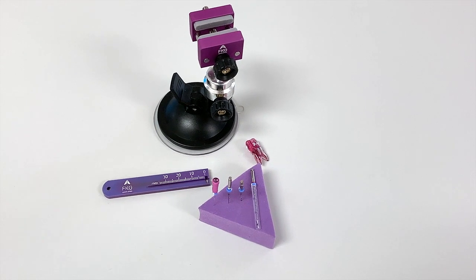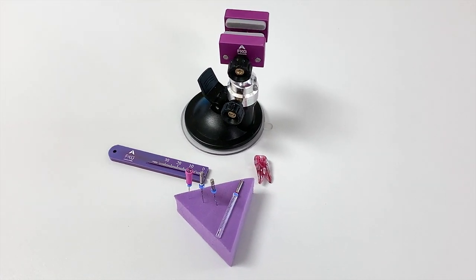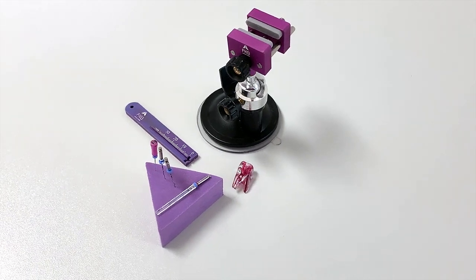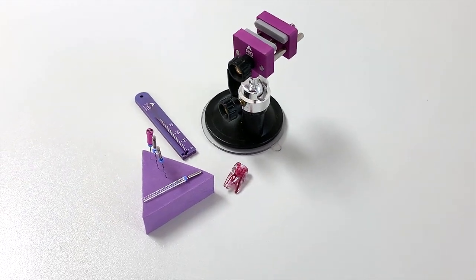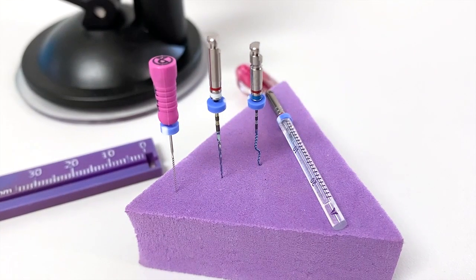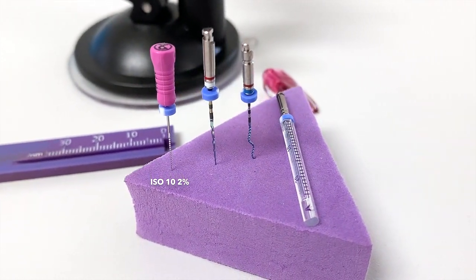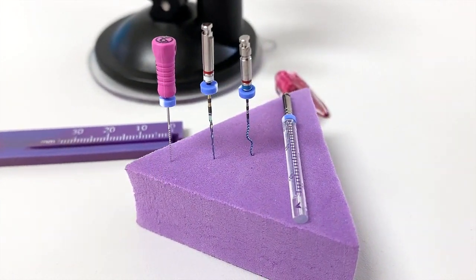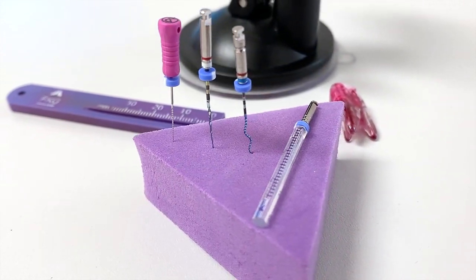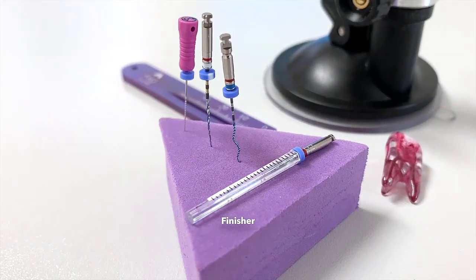Hello and welcome to the instruction manual video about the XP Endo Rise sequence and the finisher. The XP Endo Rise sequence consists of a hand file in the size of ISO 10, 2% taper, the XP Endo Rise glider and the XP Endo Rise shaper. We will also use the finisher.